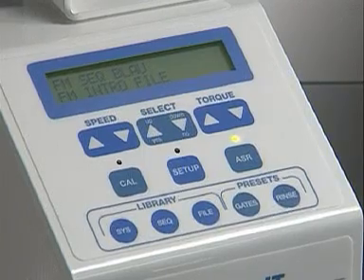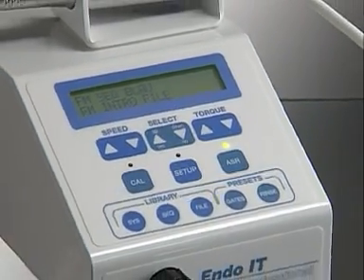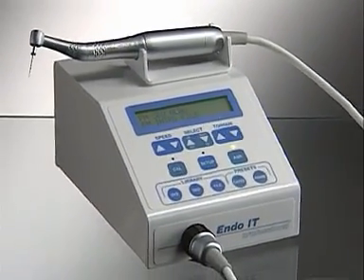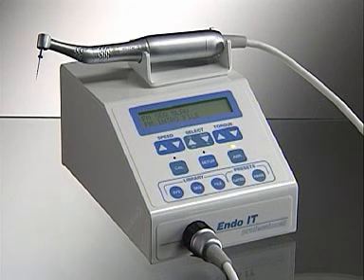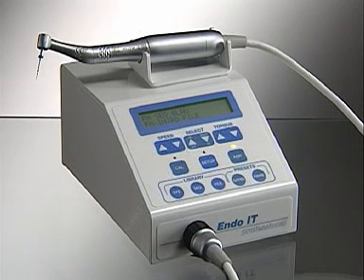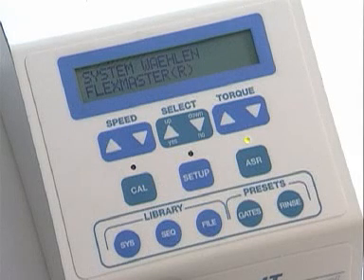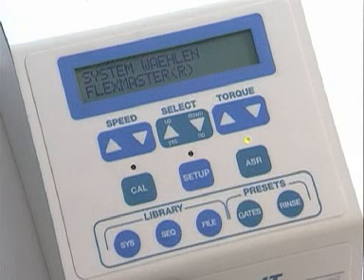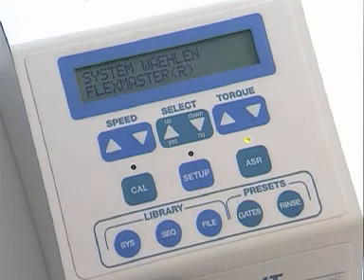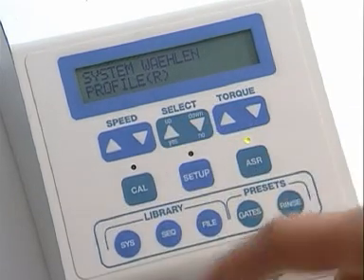If required, two personal instrument sequences, each with up to 15 instrument settings, can be set using the Doctor's Choice function. Doctor's Choice saves individual speed and/or torque settings for all instruments programmed in the motor.